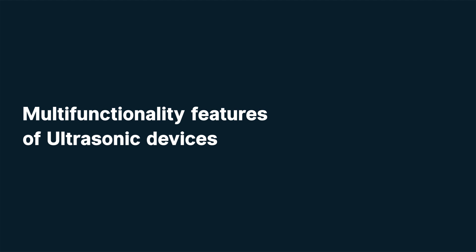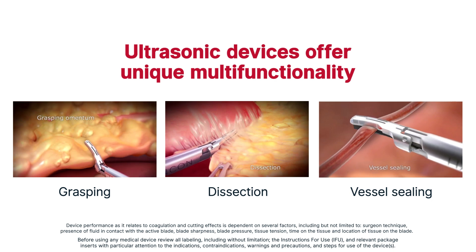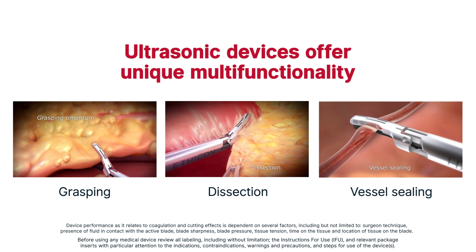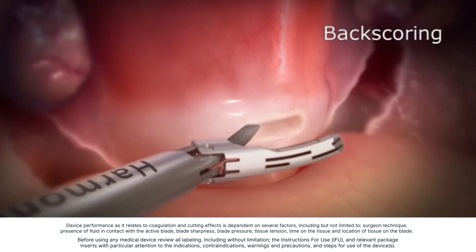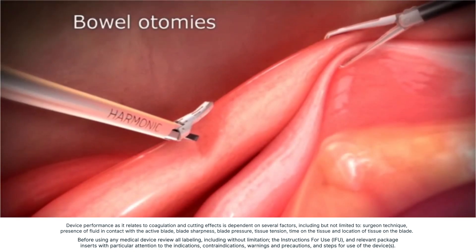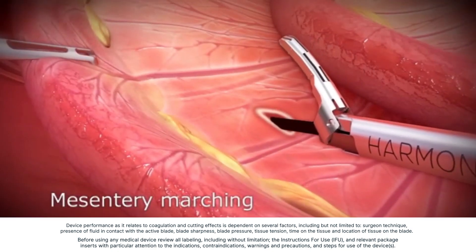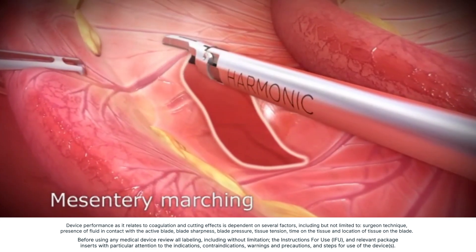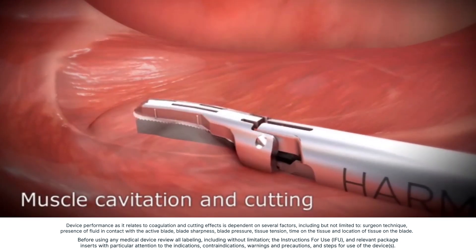Multifunctionality features of ultrasonic devices. Ultrasonic devices offer unique multifunctionality which no other energy device can provide. Devices with clamp arms are most commonly used for grasping, dissecting, and vessel sealing. Additional techniques include backscoring — dragging the back of the activated blade across tissue; creating an otomy — pressing the active blade tip into targeted tissue, sometimes referred to as drilling; marching — quickly transecting through mesentery or similar tissue, enabled by simultaneous coagulation and cut; and cavitation — using the cavitational effect at the device tip to enable tissue plane separation.